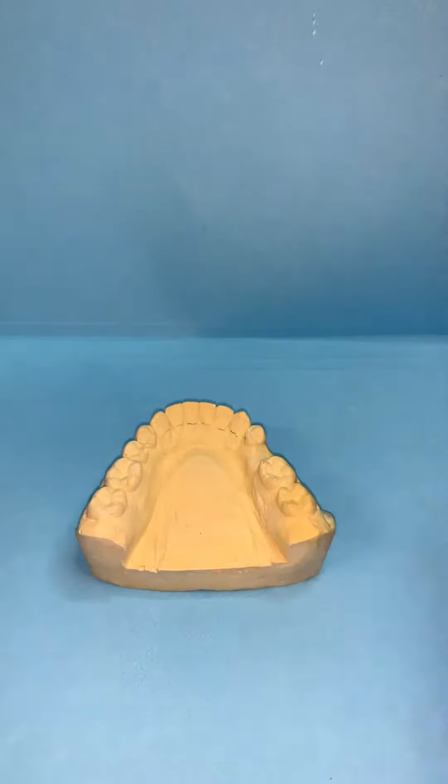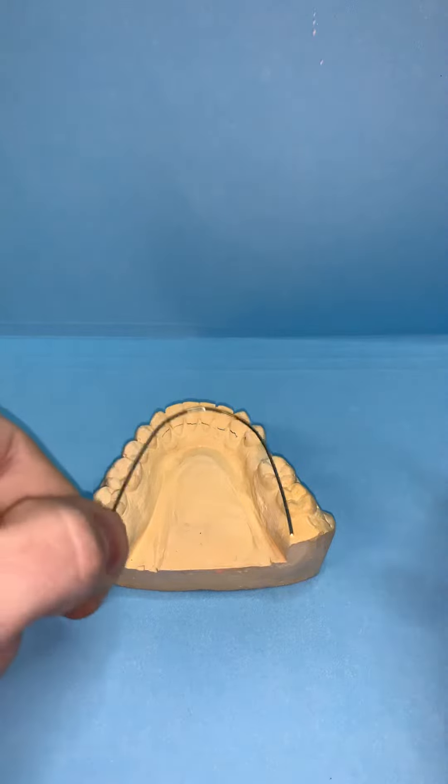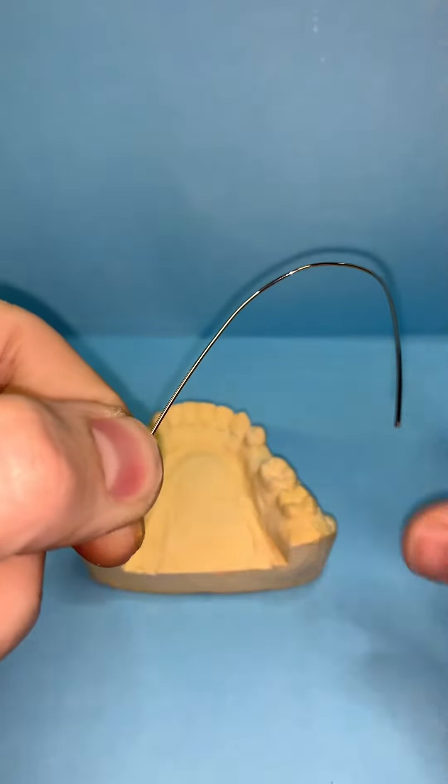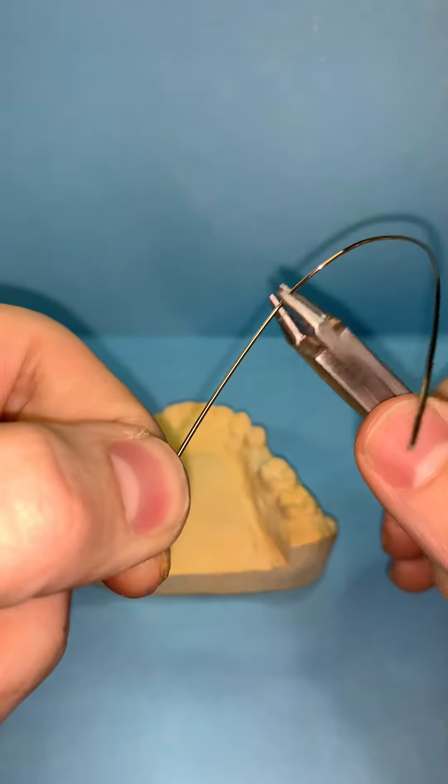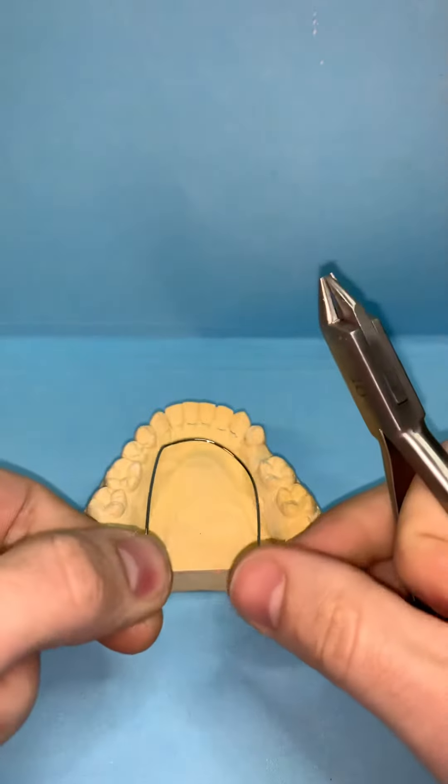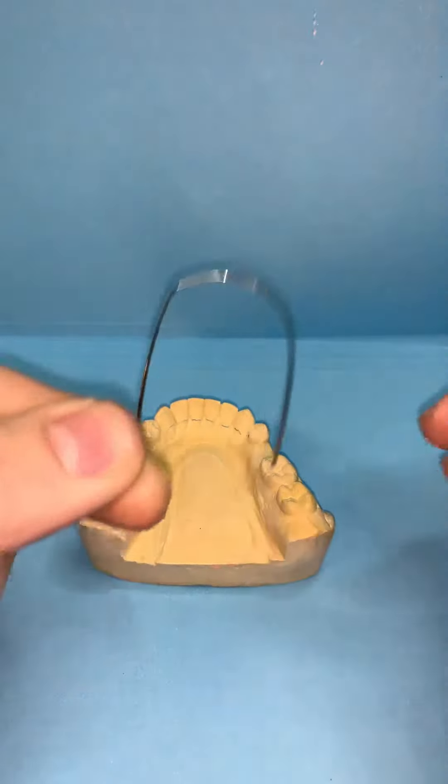And then at the K9s, we use our three-pronged plier and clip it in so it gets a little squared. And do the same on the other side.